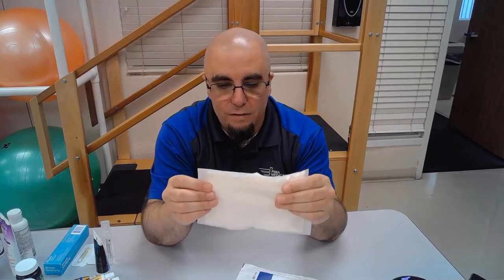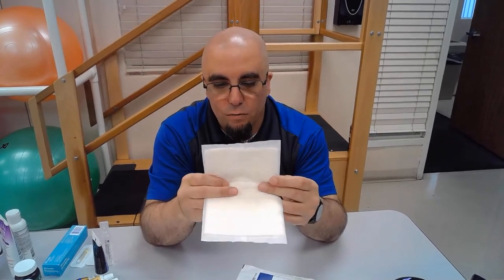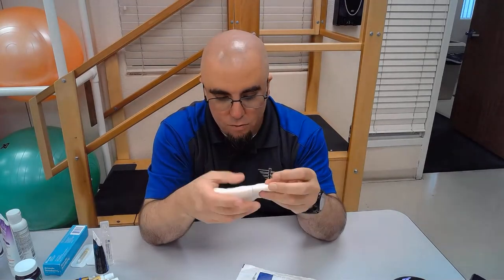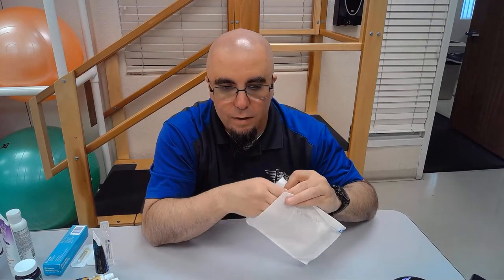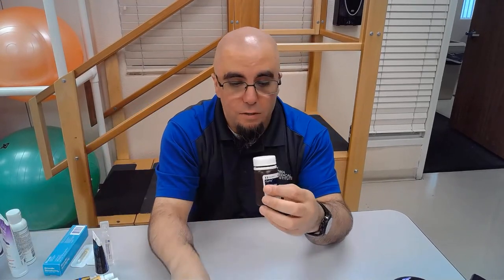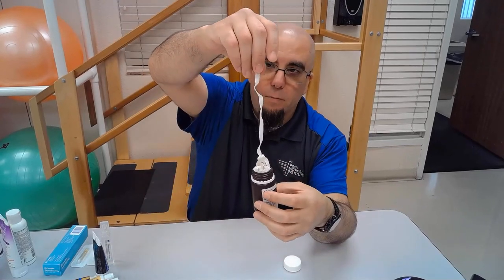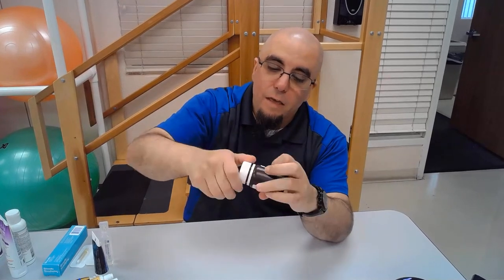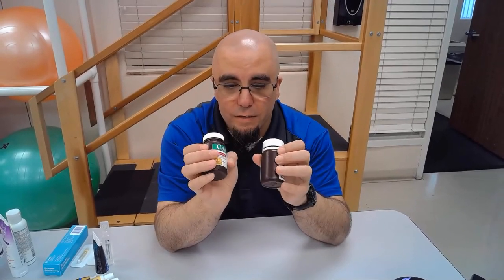Your traditional ABD pad is what you'll see a lot with heavily draining wounds. It's a gauze pad with a thick cotton interior that absorbs a great deal. There are better options nowadays, but the ABD pad was the traditional choice for heavy drainage — it's still the cheapest option. Then there's gauze stripping, which comes in two types: traditional gauze strips and iodized gauze strips for infected wounds. Gauze stripping is used for packing in undermining and tunneling.